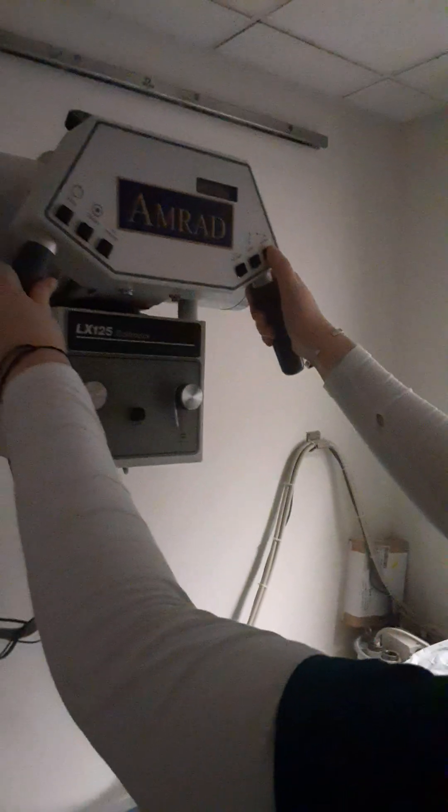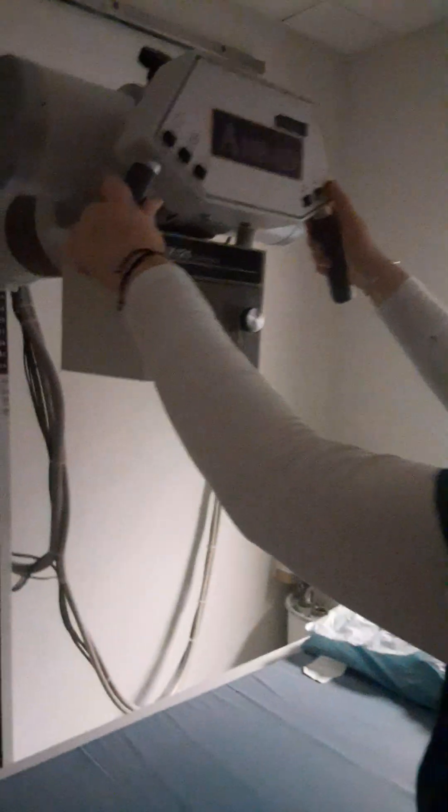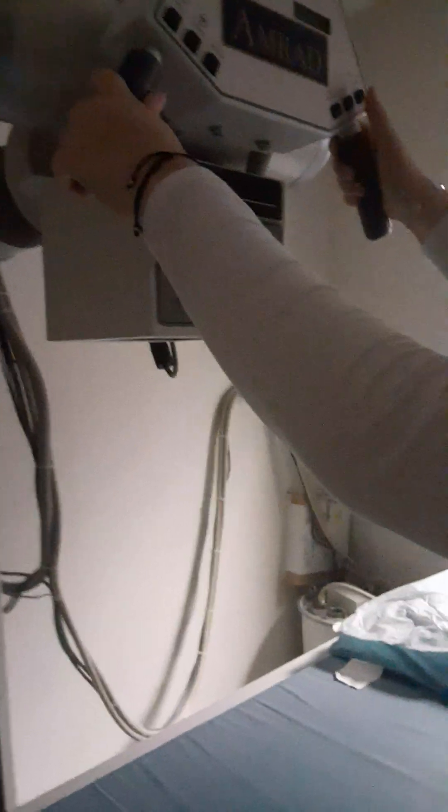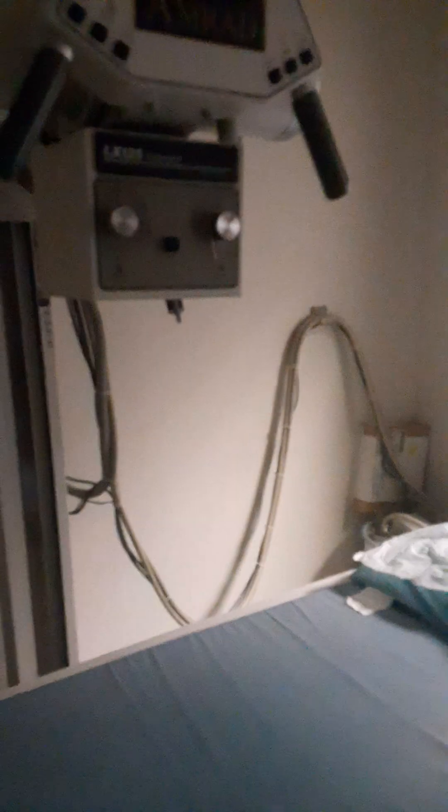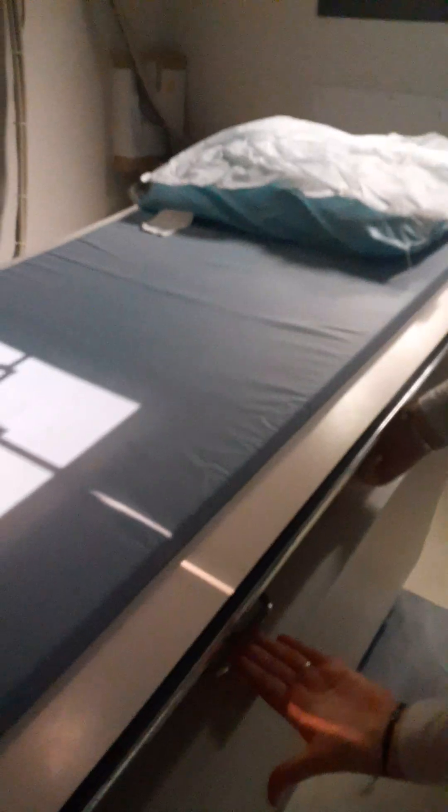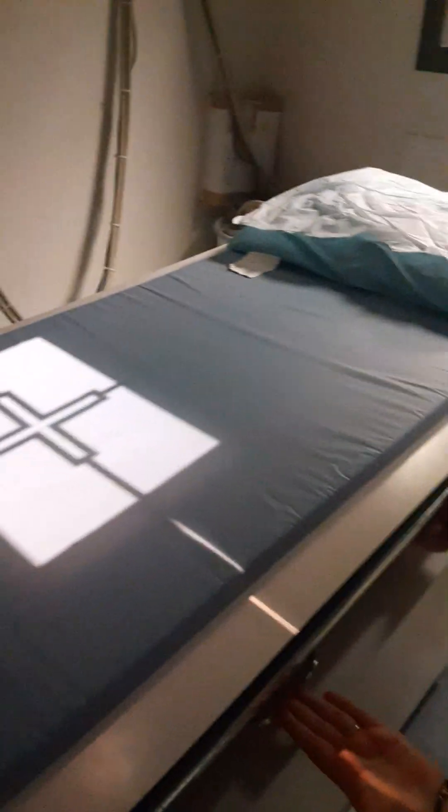Go towards the window some, just a little. That's good because we were coming off the edge of the table. Now we've got to match it to our bucky. Shine our light, find our little point here to marry. That looks good.